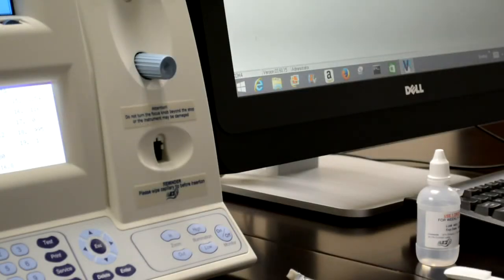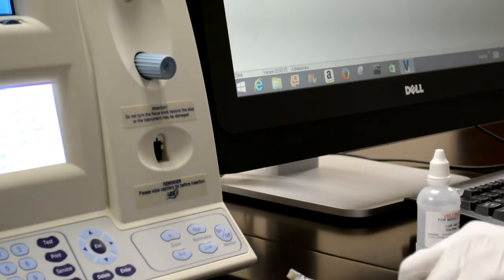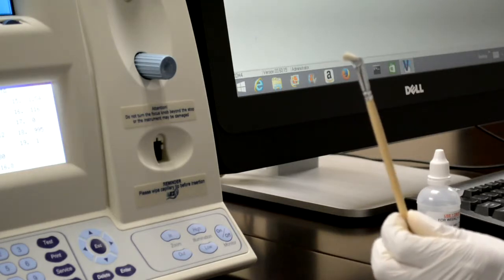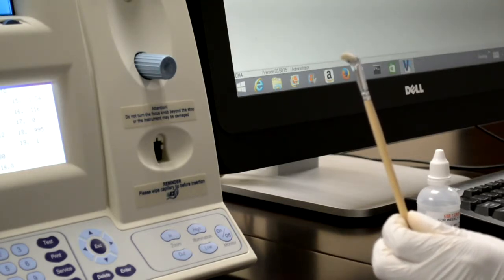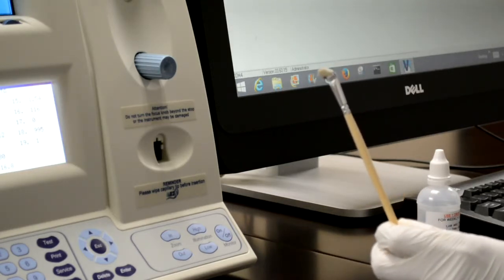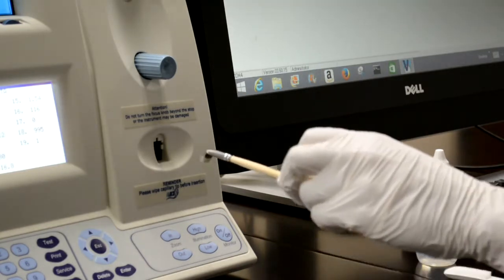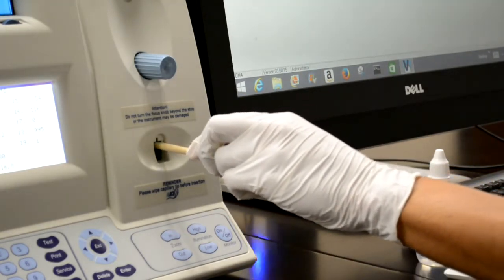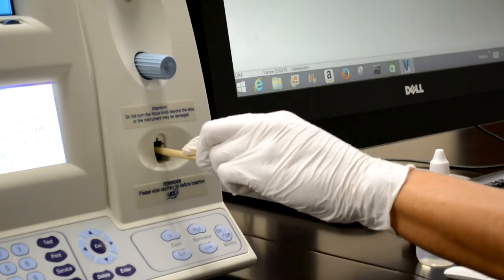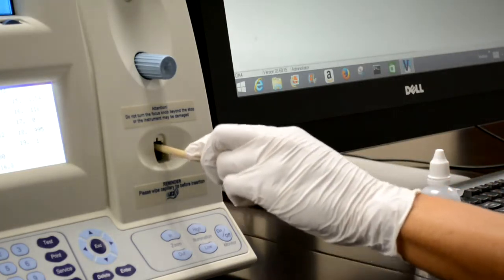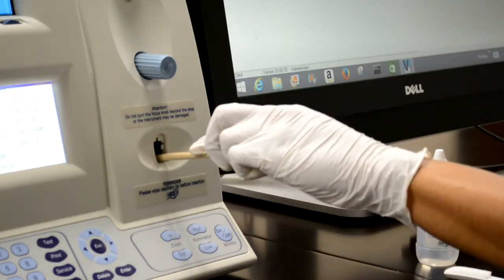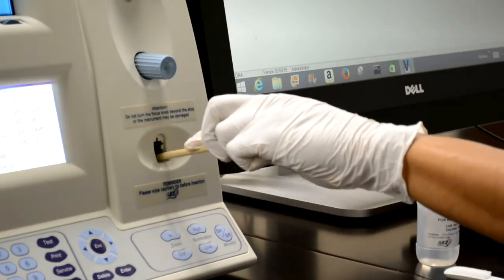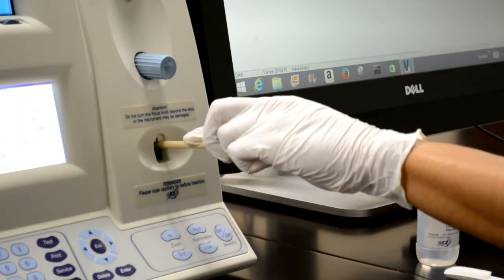In order to clean the reference 2 channel, daily maintenance is recommended using the 6-inch electrostatic cleaning brush. To use it, insert it into the chamber with the bristles facing down. It should be reached all the way back until you feel a little ledge. From there, use a sweeping motion, pulling down and away, in order to clean this channel.